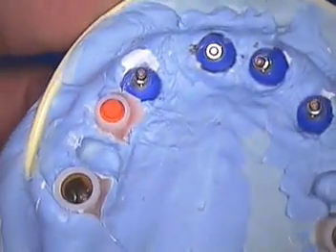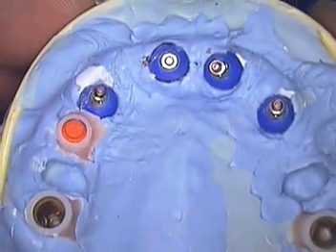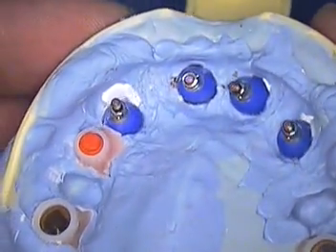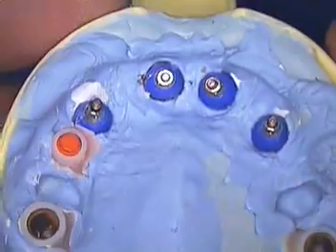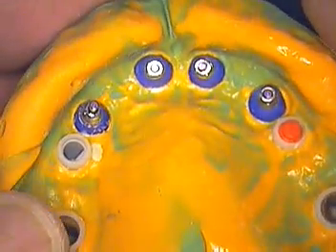Here's another case just to show you. This was taken at the day of surgery, very similar to this other case where we went ahead and then took the final impression — bone level at its best. Easy to understand at this point, hopefully. Many of these are immediate load cases, so if you have any questions about how we did these cases, feel free to write in or call. I'd be happy to talk to you about the technique.